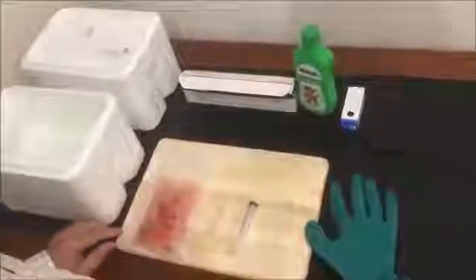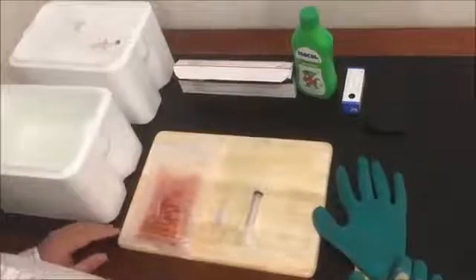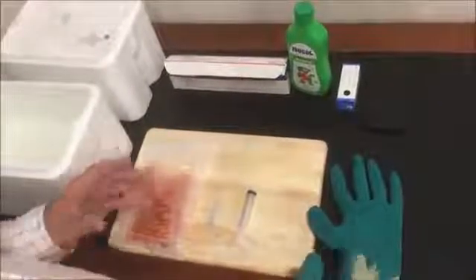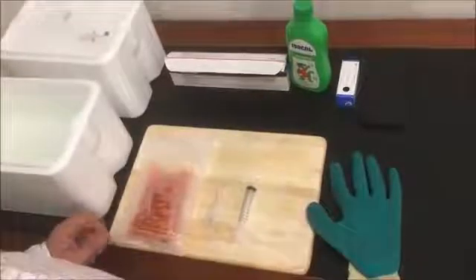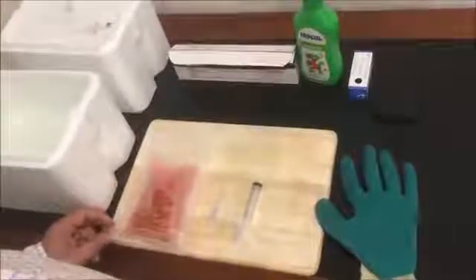We are making Marek's wet vaccine from Marek's vaccine that has been delivered in an ampoule in a wet state, frozen. At this stage the Marek's vaccine will be either in dry ice or in liquid nitrogen.